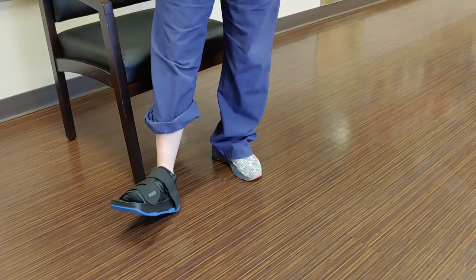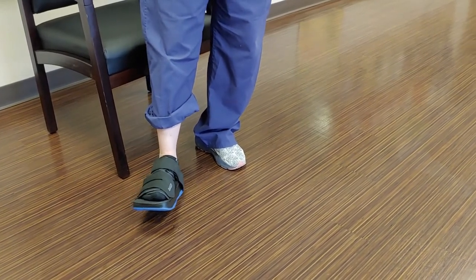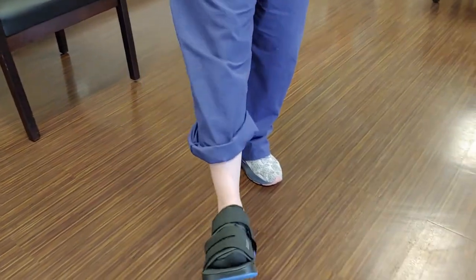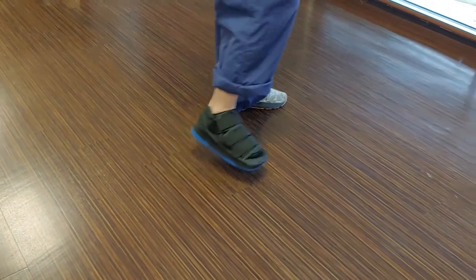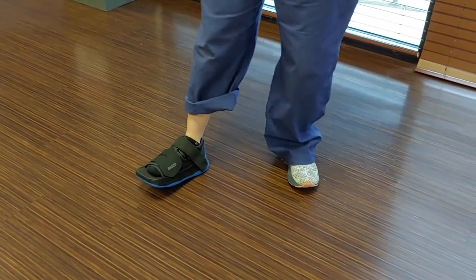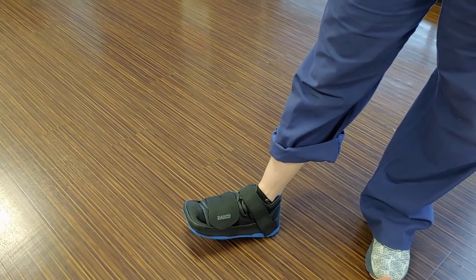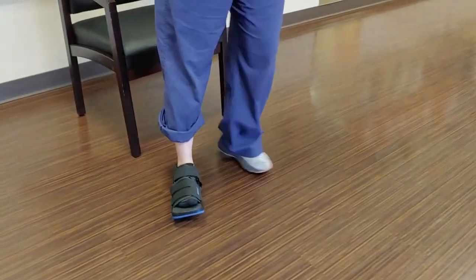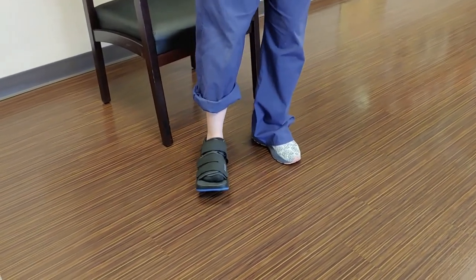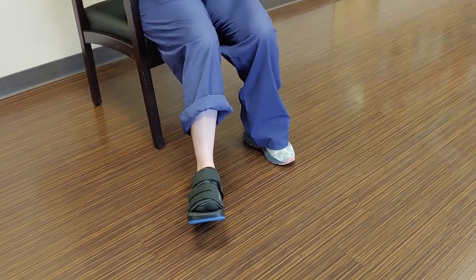This boot has a little divot that makes heel walking a little easier. Think of a pirate with a wooden peg leg — whenever you take a step, heel out, step, heel out, step. Keep your knee pretty straight so you stay completely off the front of your foot. For example, if you've had bunion surgery and need to stay off the front so your screws don't break, that's how you walk. If you're non-weight bearing but your doctor says you can use your heel for balance, this is what it means: walking to a commode, getting off your crutch, balancing and sitting — you've put weight on this leg using just your heel for balance, without falling or harming your surgical site.